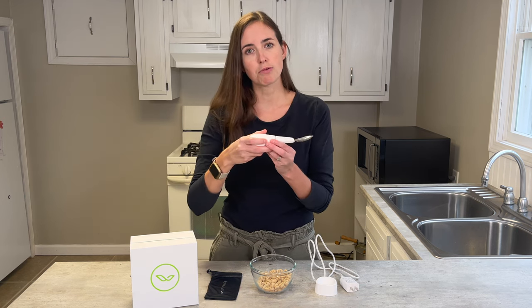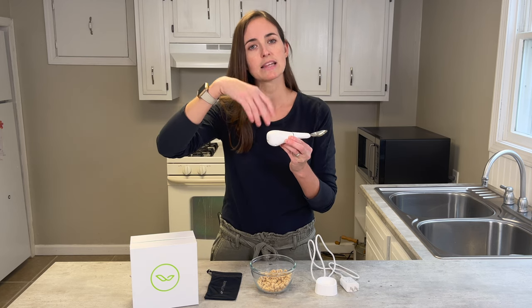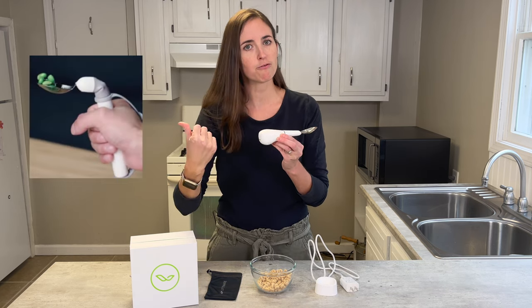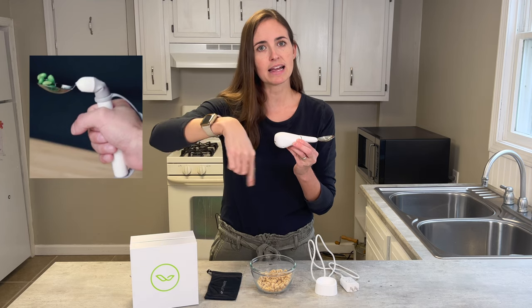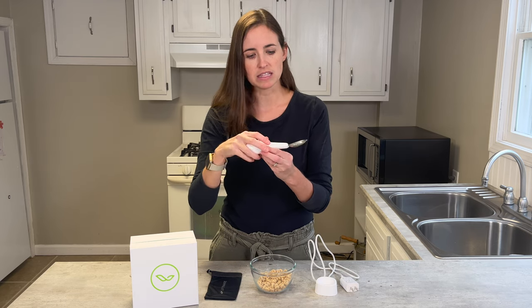This is not meant to be the product to use if you have really severe wrist weakness. There's a different product available on the Liftware line that can accommodate a significant wrist drop — that's going to be a different product. This one is more specifically for tremors.